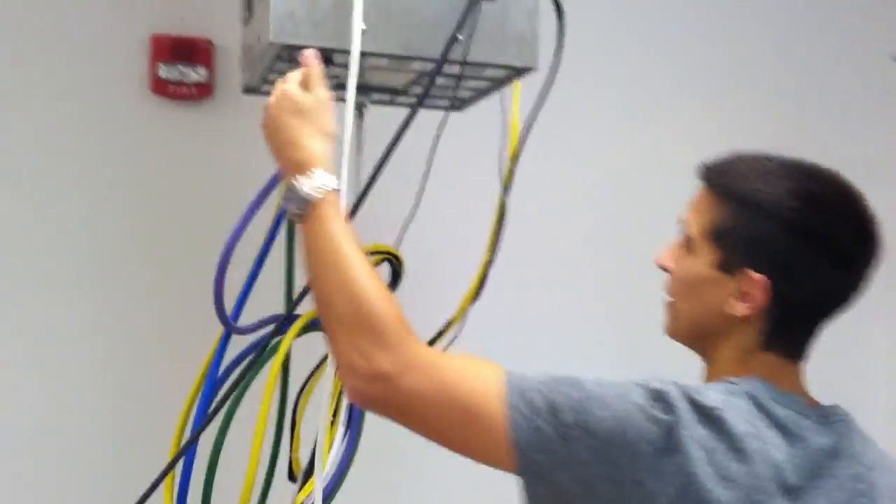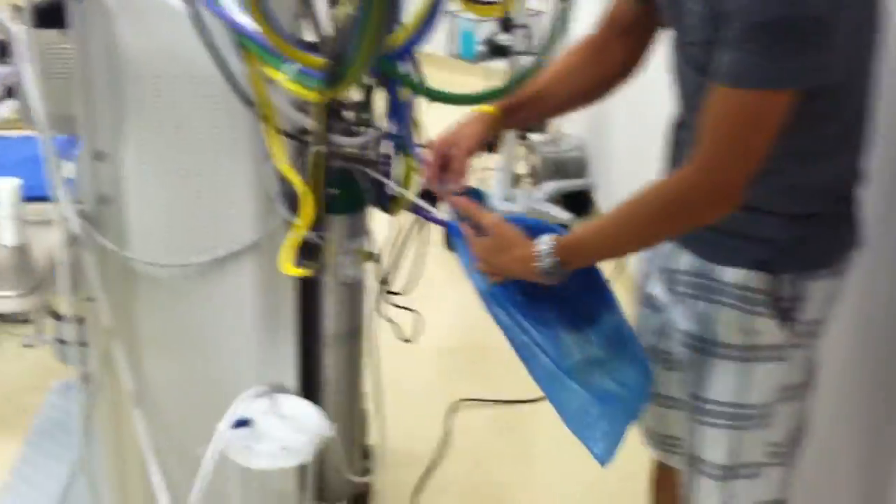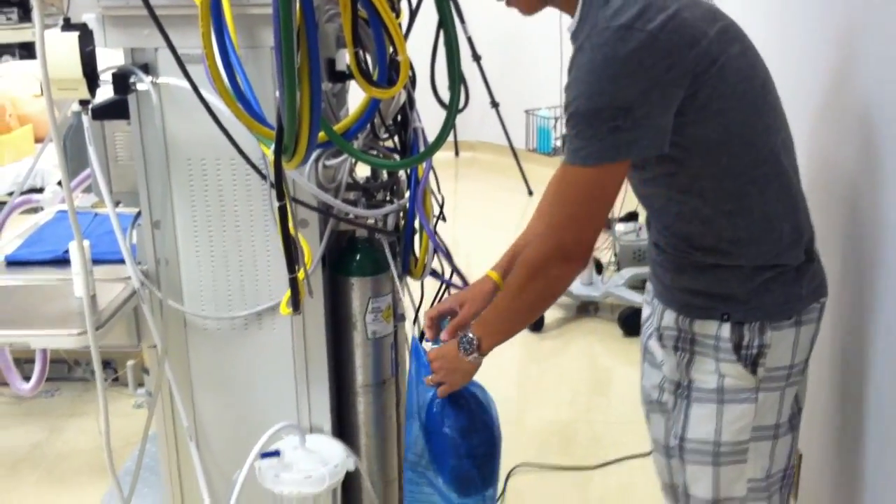As you're going back, I'm making sure that all my connections are good and tight, everything's plugged in. I'm going to check my ambu bag — clip the end, make sure it holds pressure, and then confirm it can bring in air.